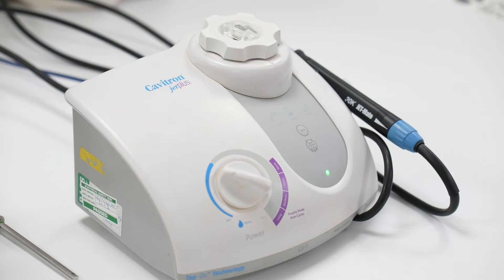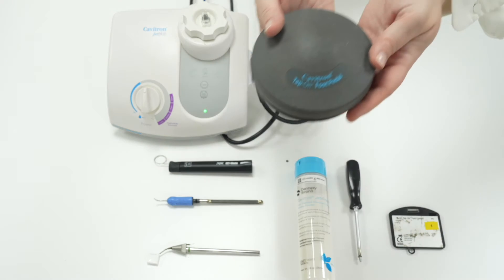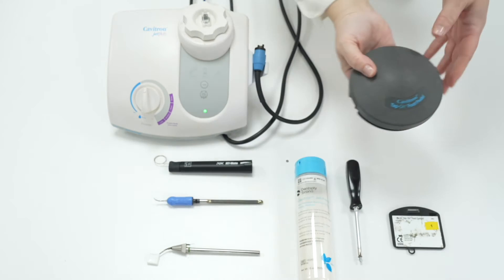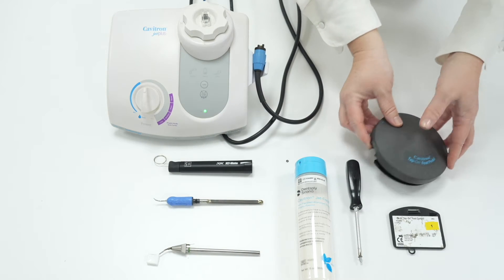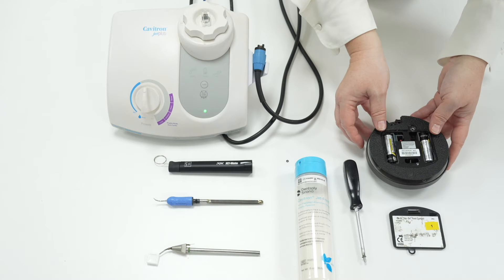Some Cavitron Jet Plus units will have an updated tap on foot pedal function. You must use the right foot pedal with the right version of the Cavitron Jet Plus and also the Cavitron Plus. If replacing the foot pedal please take care to replace the correct foot pedal with the correct Cavitron option.